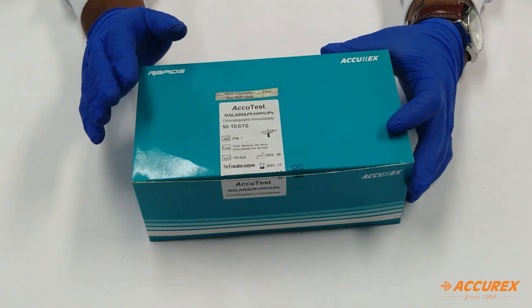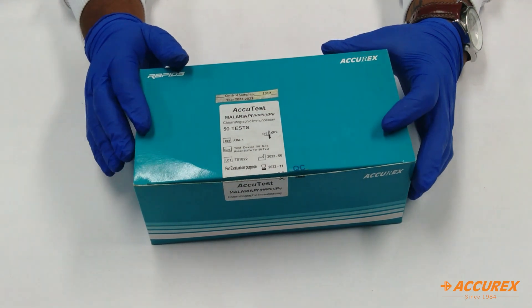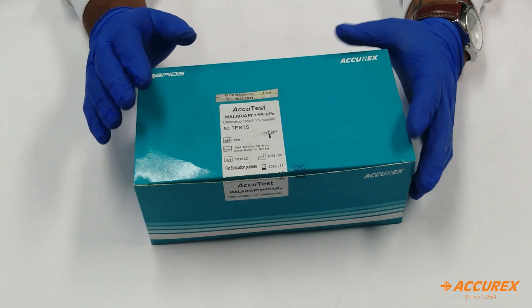Do not use the test strip when it is found in broken or damaged condition. So next we will see the components inside this kit.